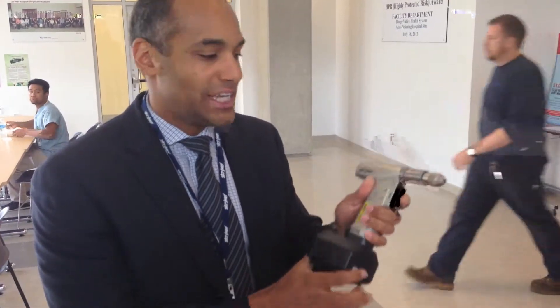Hi, I'm Nathan Hale from Stryker, sales rep for Stryker Orthopaedics. Today I just wanted to introduce Cordless Driver 4. Really lightweight technology, super awesome drill that you'd use for trauma applications.